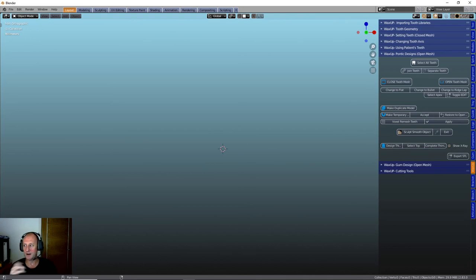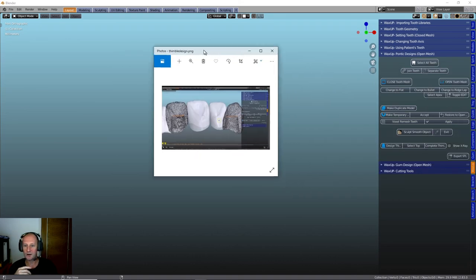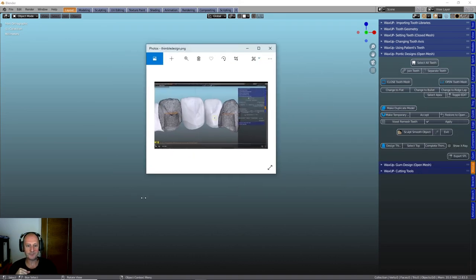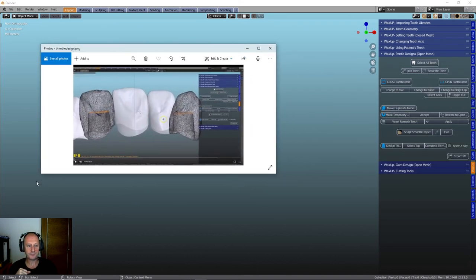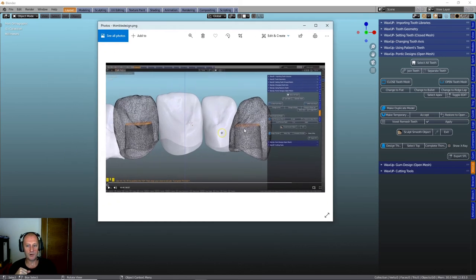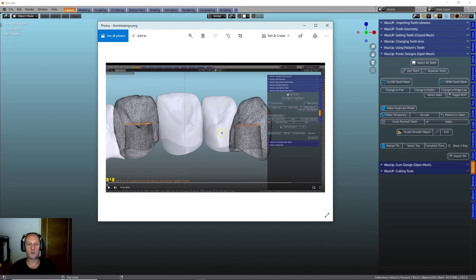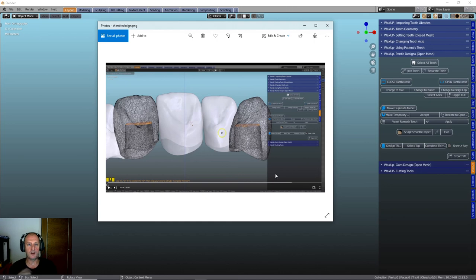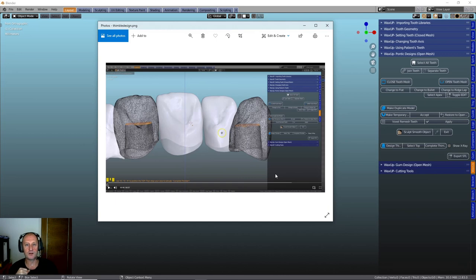And as you can go, we can also design a thimble underneath that which, as you can see from this picture, there we have the thimble. Here we have the open shell tooth and then we will create a thimble underneath that in which to take away and we can then put that on a bar or we can put that on a framework and then have a temporary that will fit over a very close fitting structure. So, again, you can see this is where the crown and bridge side of things is starting to come in and the adaption which they're going to need to be able to do obviously when you're doing crowns, definitive crowns.